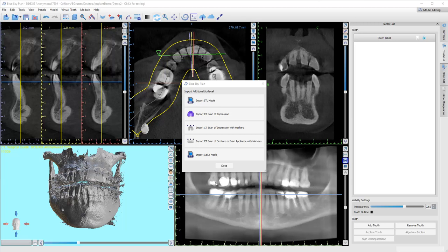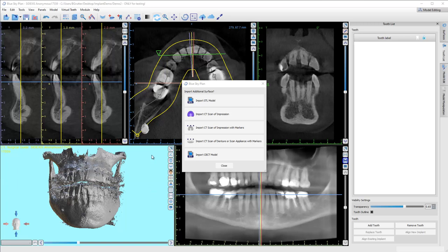We've imported the CT scan and the first thing it asks us to do is bring in the patient's STL file. The software historically has done a really good job of automatically stitching — that's the term we use for alignment of the STL file to the patient's DICOM data set — but sometimes it doesn't work. I haven't even tested this case, but even if it does work, I'm going to show you a couple other techniques.